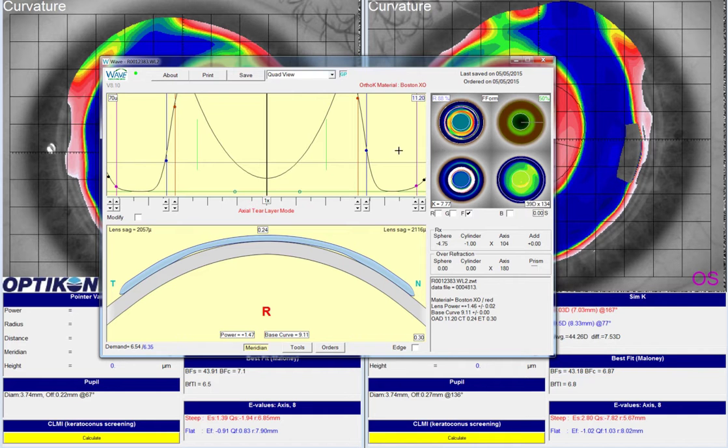This change I would make in 50% mode, and I would go for about a 10 micron change. So right now we're at 766, and I would make the new sag here 776.